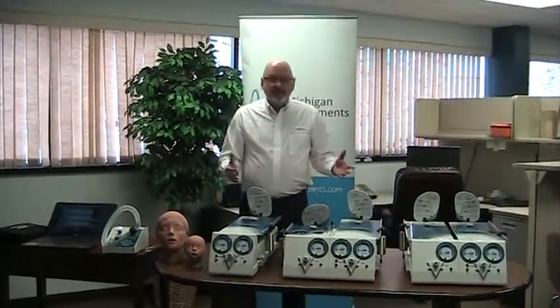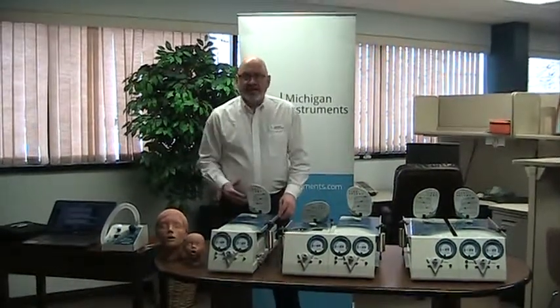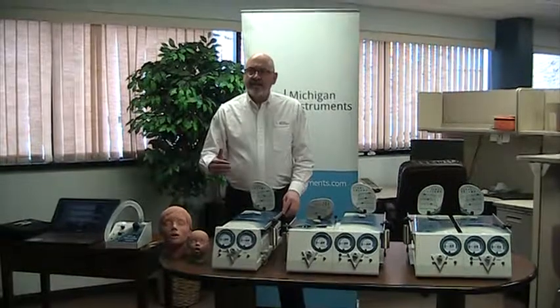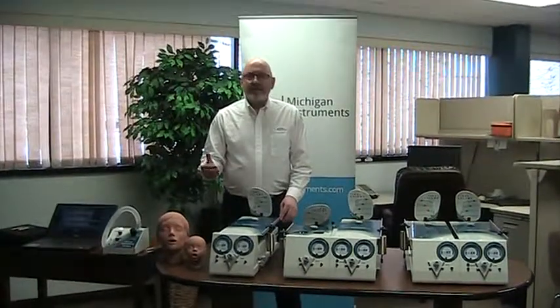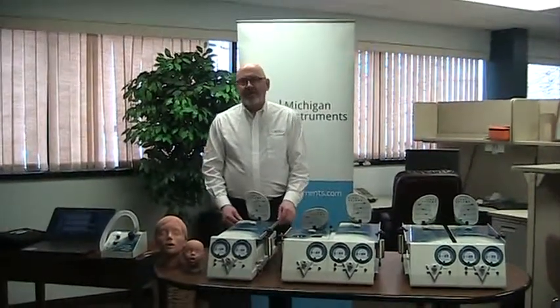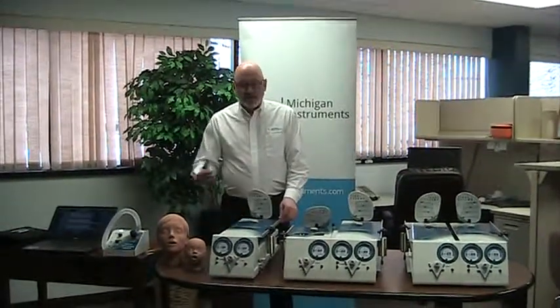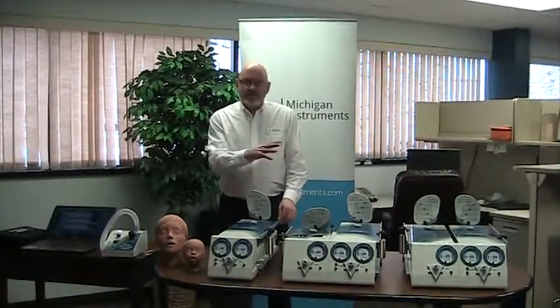The TTL configuration is purely mechanical, so it incorporates gauges and scales. The NuView version of these products incorporates an electronics module that's embedded in the back of the unit, and NuView software, which allows you to interpret, record, and save data from the test lungs.